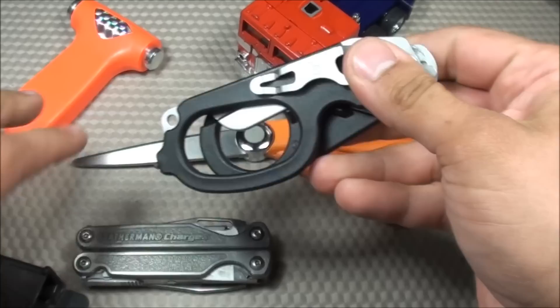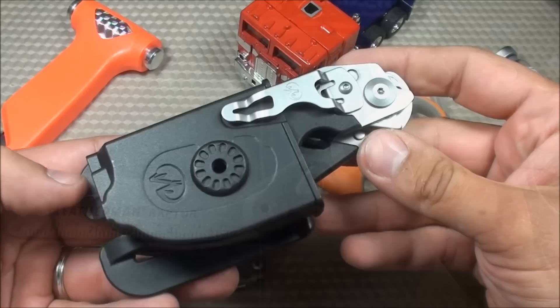Let's get started with this product review of the Leatherman Raptor medical shears slash multi-tool. I'm not exactly sure why they call it the Raptor, but I think it has something to do with the overall appearance of the seat belt cutter — it kind of looks like something you might have seen in the movie Jurassic Park. Clever girl.